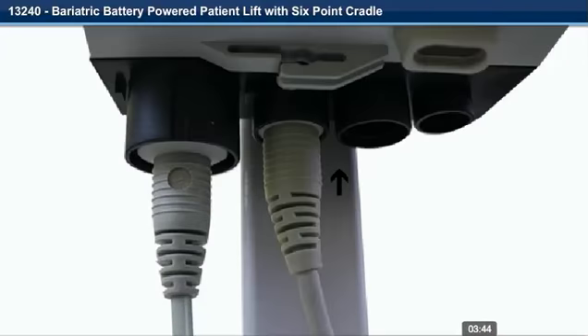Step 23. Put the connector for the motor actuator cable into the small round socket on the controller. Step 24. The plug must be pushed in flush with the controller. If there is any difficulty when inserting the plug, a very small amount of petroleum jelly on the rubber O-ring is required.